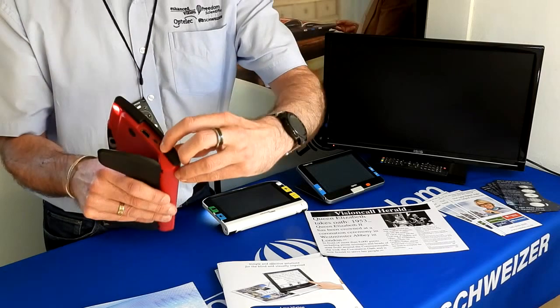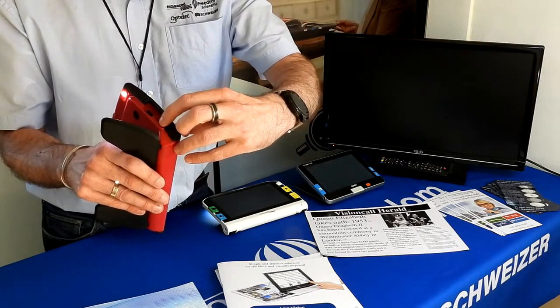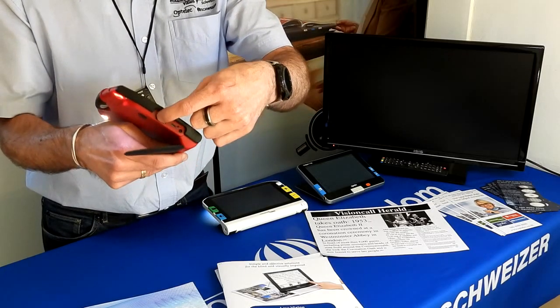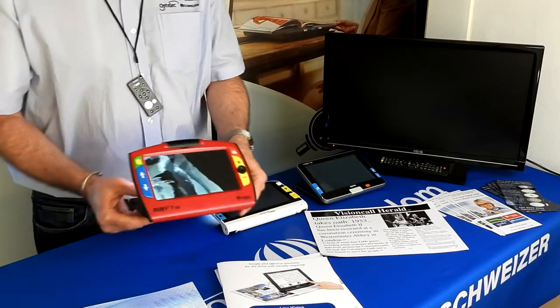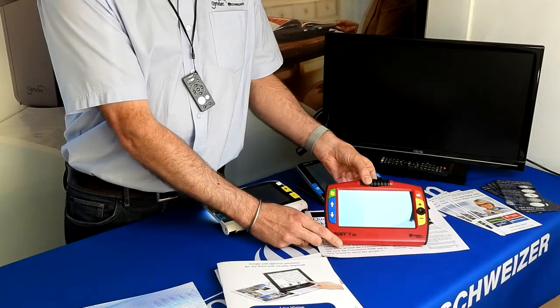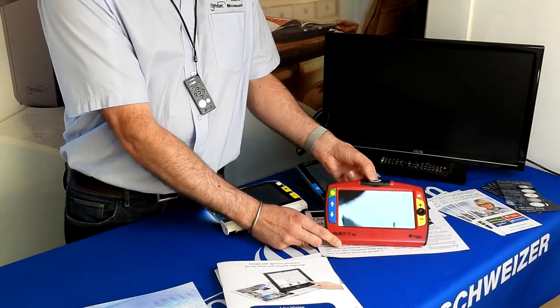You still have your power selection and a flashing light to show how much battery remains. It has USB and also a full-size HDMI — so instead of a mini HDMI you get a full-size connector. One of the features I particularly like is the pivot cam: by adjusting the camera, you can use the device in several different environments.